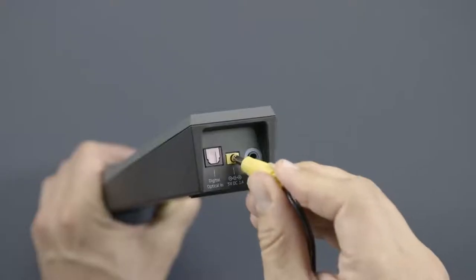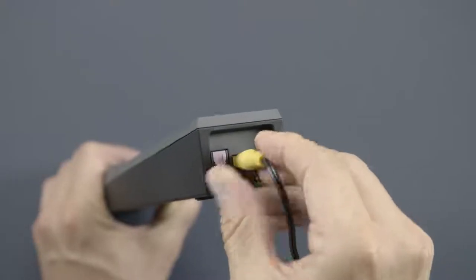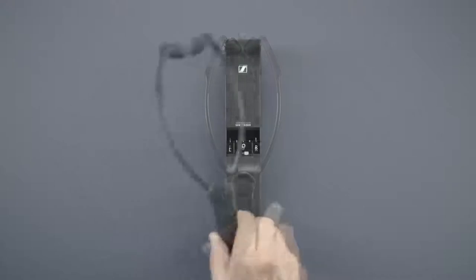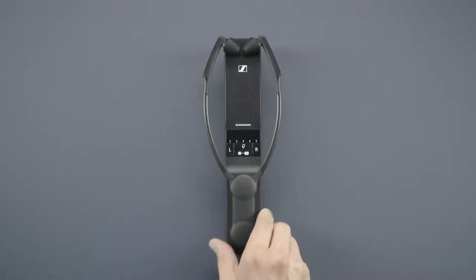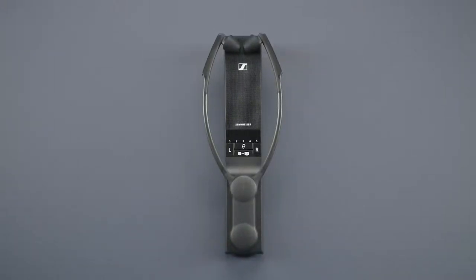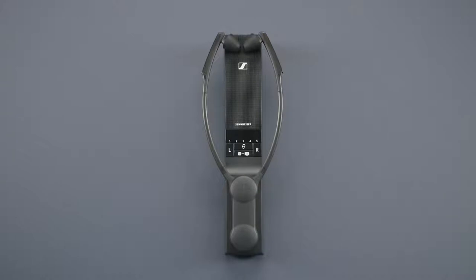First connect power and charge the wireless receiver for about 3 hours. When you unpack it, the batteries are not fully charged. Now connect sound.